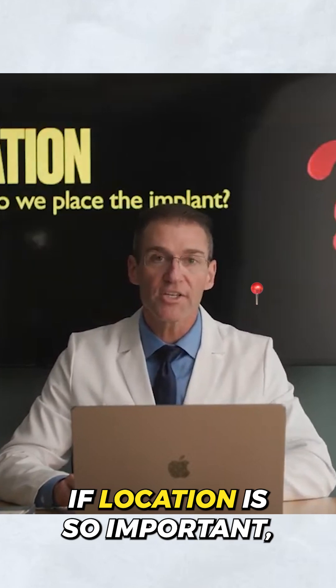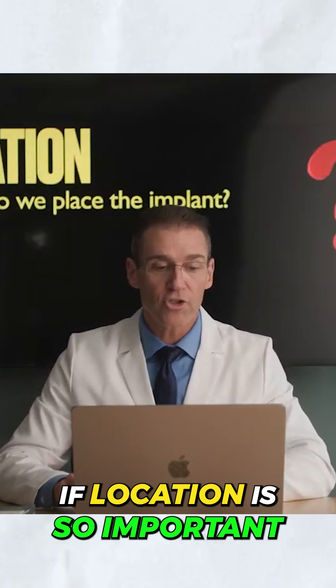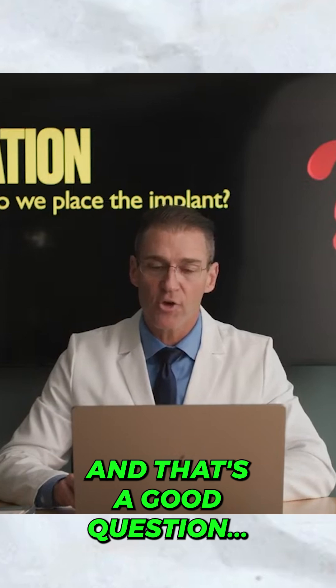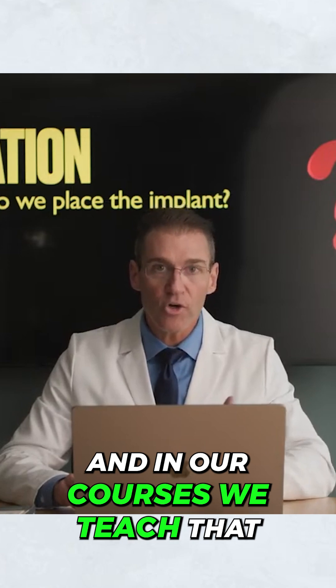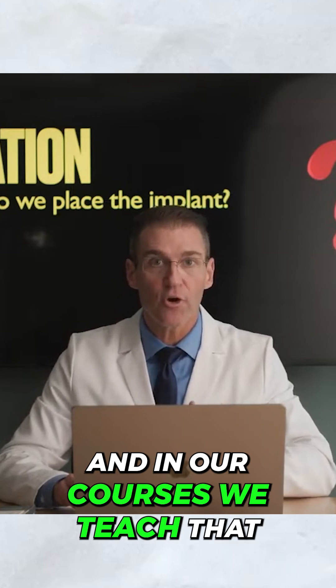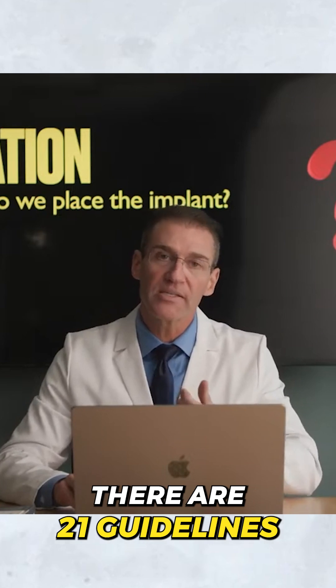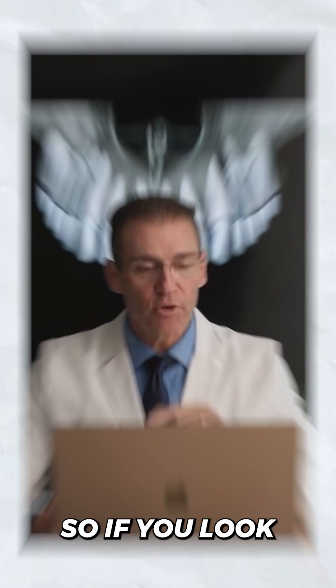So you might ask, if location is so important, where should we place the implant? And that's a good question. In our courses, we teach that there are 21 guidelines for placing implants in the right location.